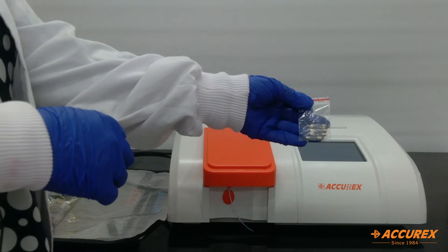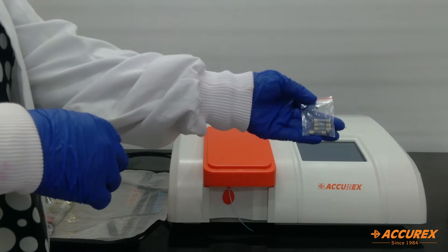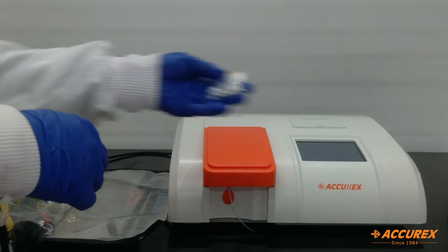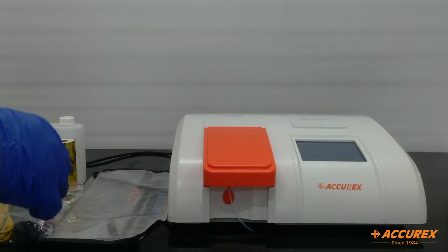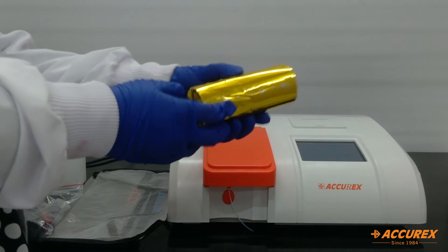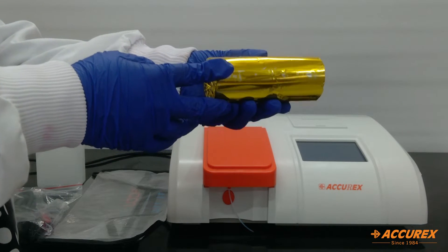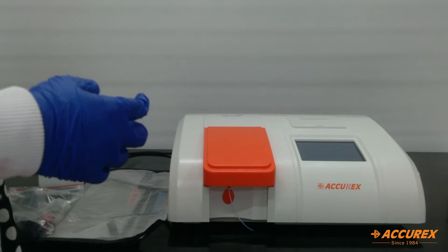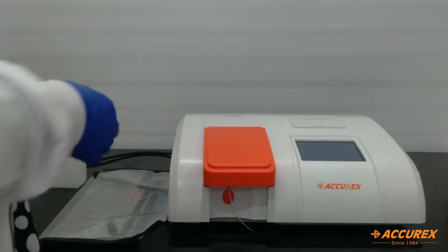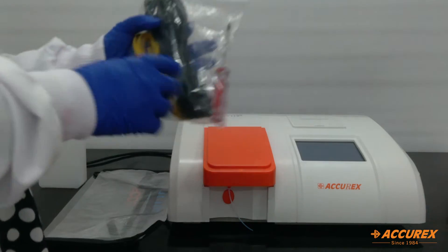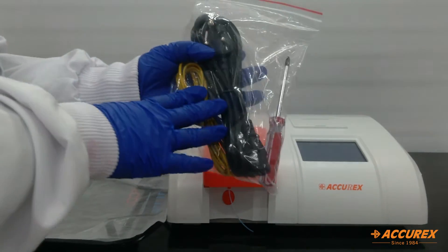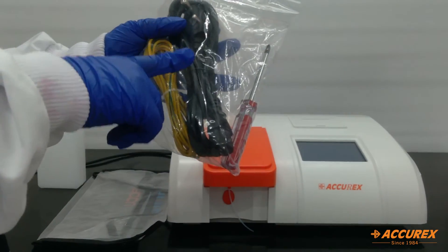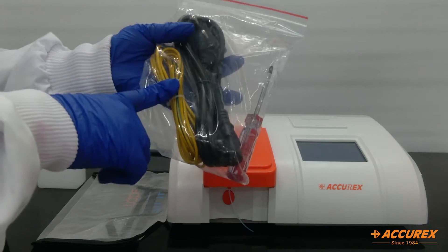This is the fuse, 2 ampere and 4 ampere. These are two printer paper rolls. In this packet you will get a screwdriver, a power cord, and a ground cord.